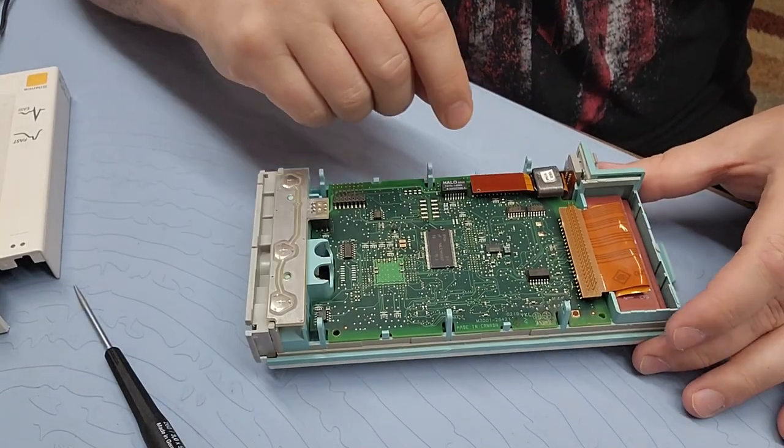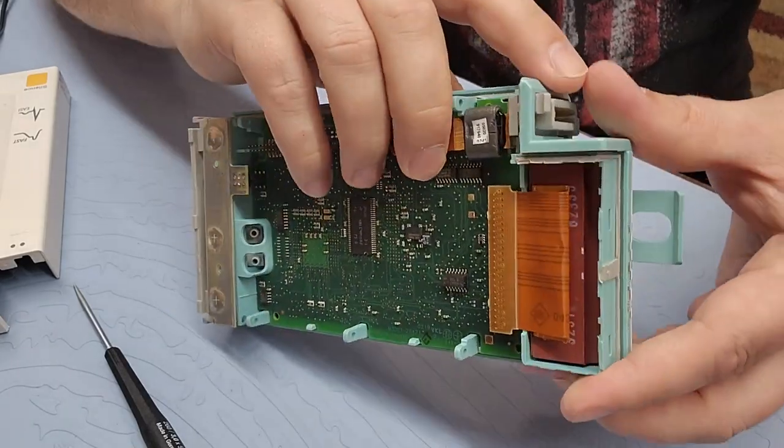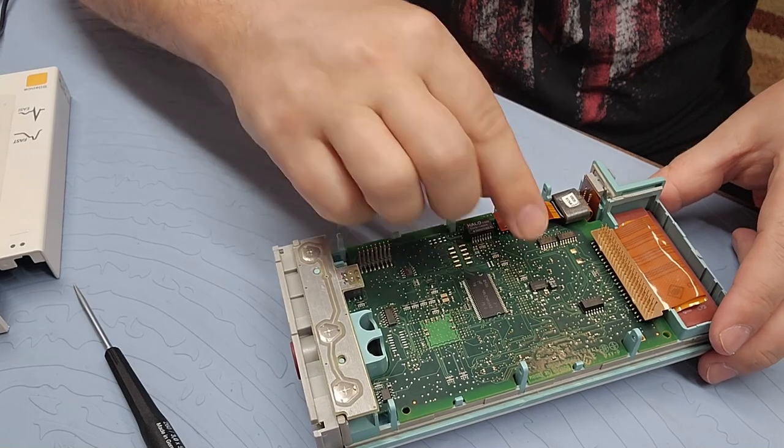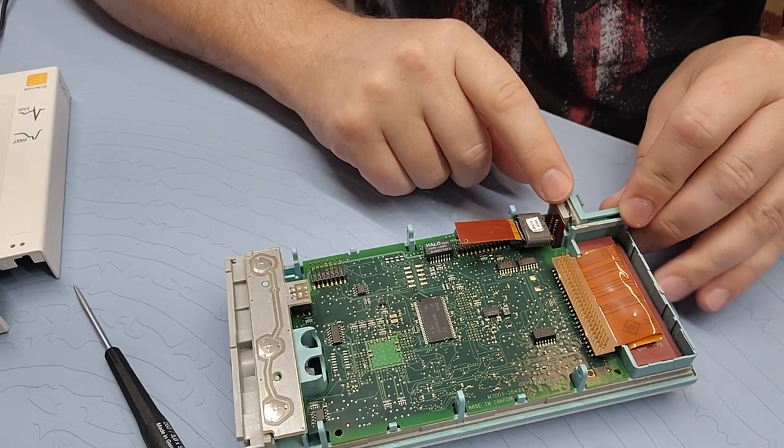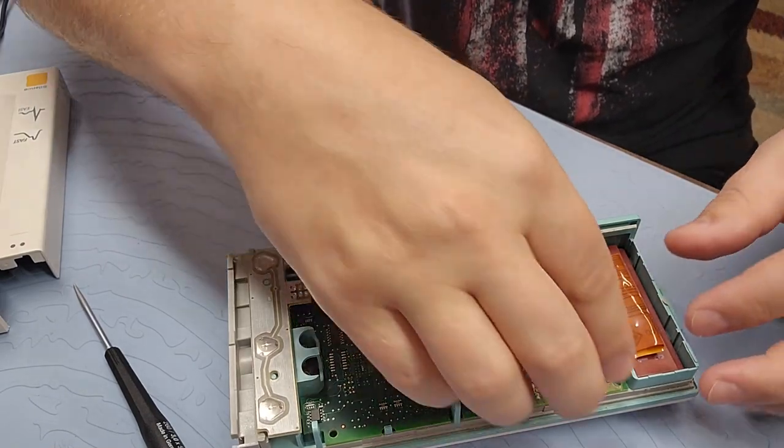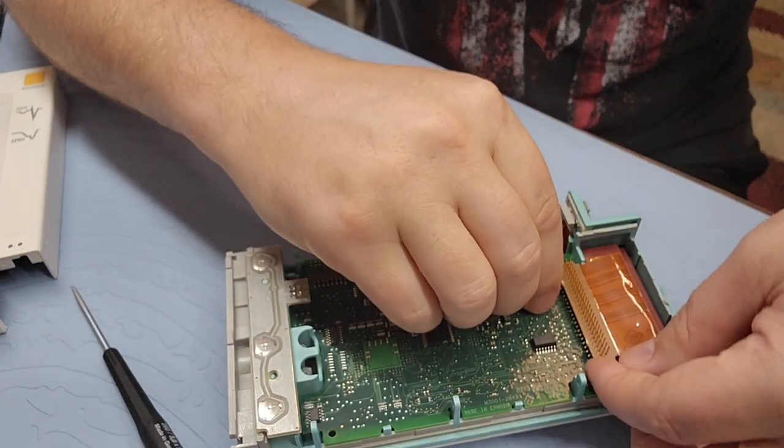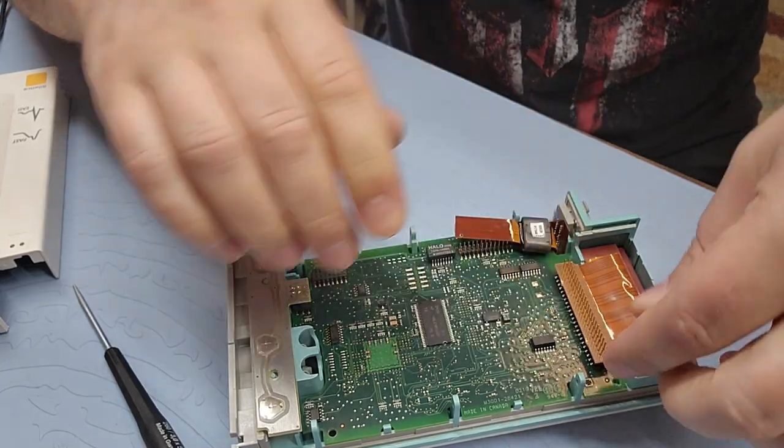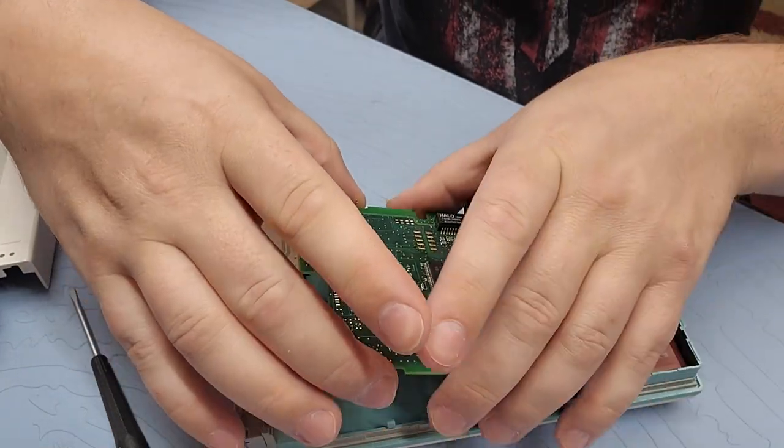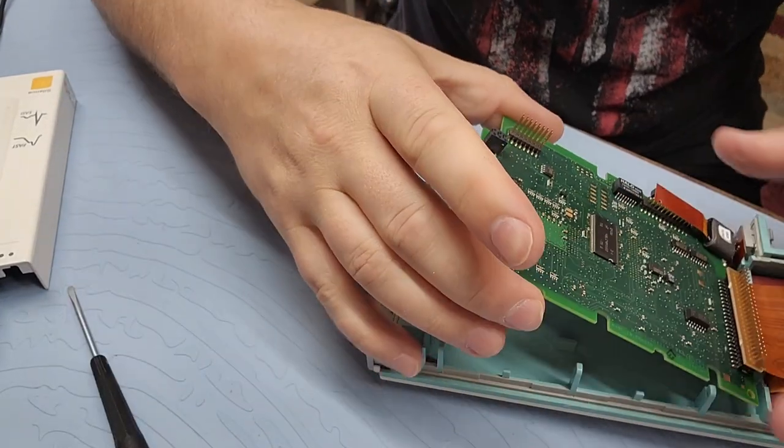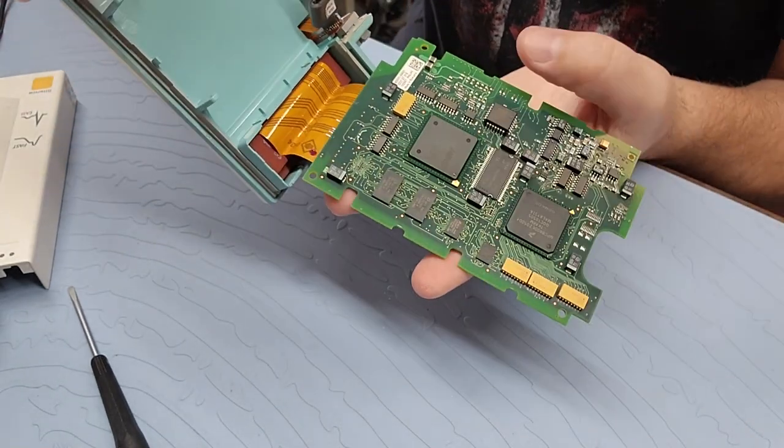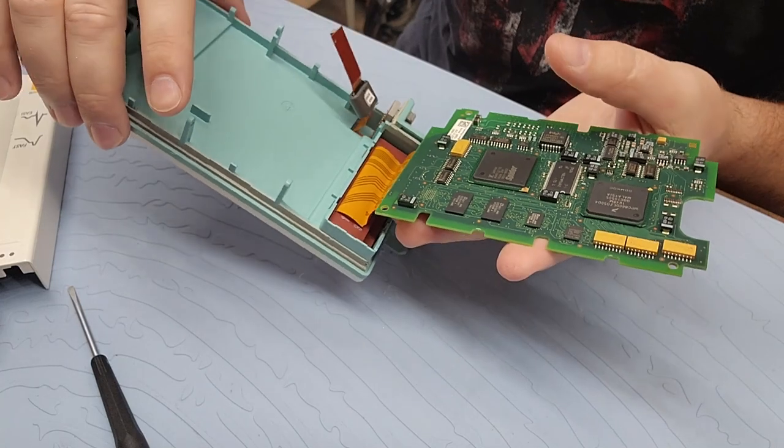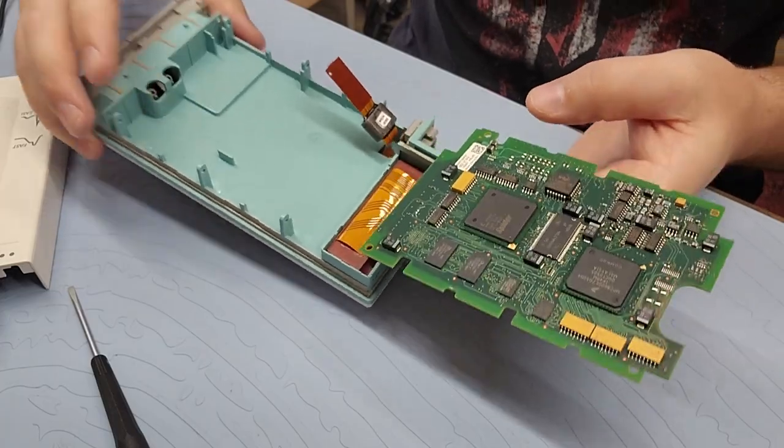So now you can see that I have several other different interconnects. One of the most important one is the one for the port right here. It connects right here. And again, it just pulls up nice and easy. This port is actually changed out quite often from probably usage and abuse. It's going to be one of your more common repairs on these modules. And let's see if I can get this guy out. So the power buttons, again, they just press in nice and easy. This guy was actually designed so that you could flip it over. That's your main CPU board right there. And based on some of the chips, I would say that this guy also does all the I.O.